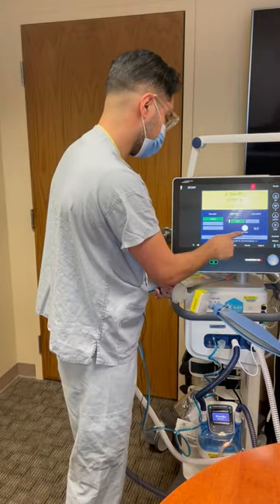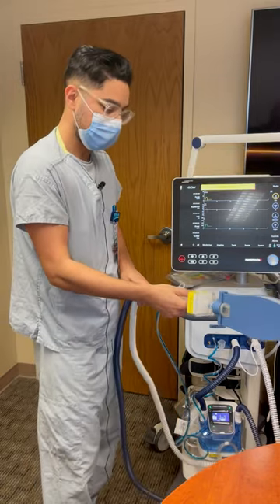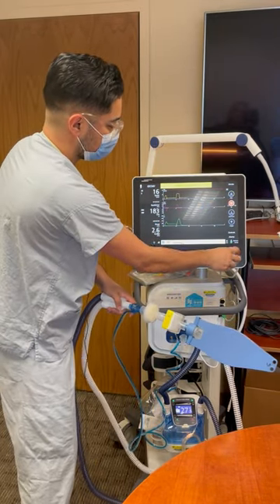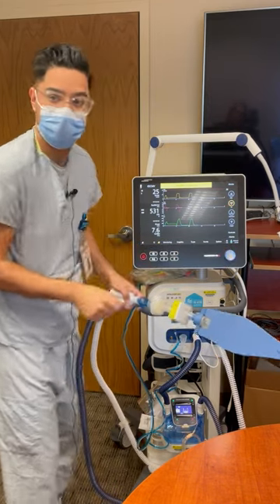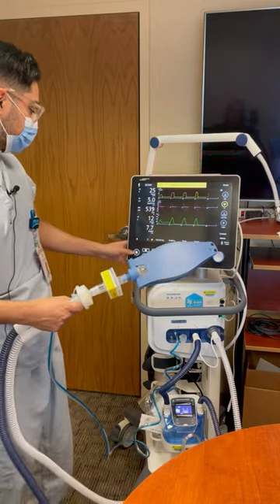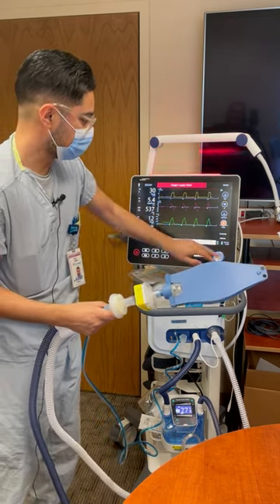So I'll just turn it on for you guys here. It's all touchscreen, so you can adjust for every patient on the screen. It has alarms and the alarm volume can be adjusted quite a bit as well. It's just alarming because it's not connected to oxygen there.